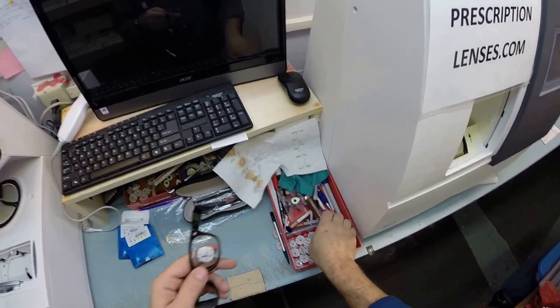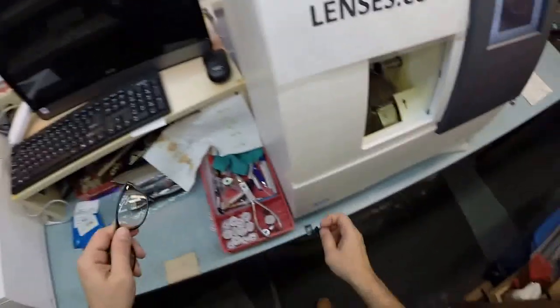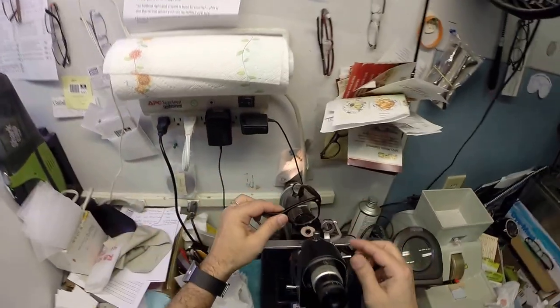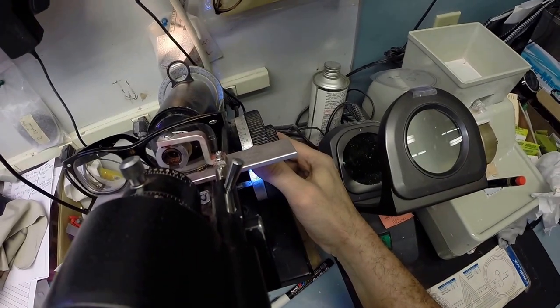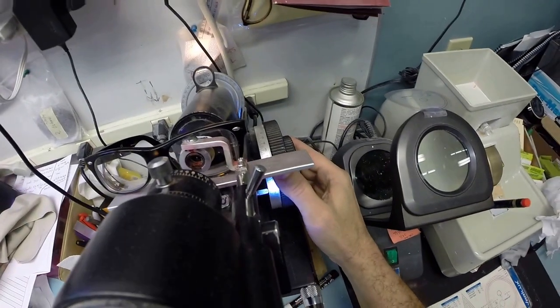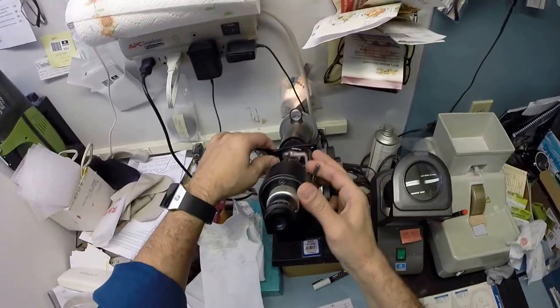Let's go ahead and take your left lens out. Dry it off. Use my thumbnail to scrape away any residue lens material that may still be on there. To see if your left lens fits, I'm gonna tuck it in at the outside corner using my thumbs. I press down at the nose and it snaps in perfectly. I'm going to put it in your left eye right above that white dot and I'm going to measure the power in the left eye. I'm getting minus 2.50, which is exactly halfway between two and three. When we check your astigmatism correction, I'm at a total of minus 3.00. Again, 2.50 and 0.50 gives me 3.00. I couldn't cut that any better if I had done it myself. But wait, I did do it myself.